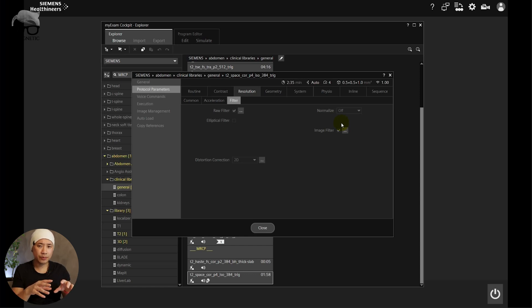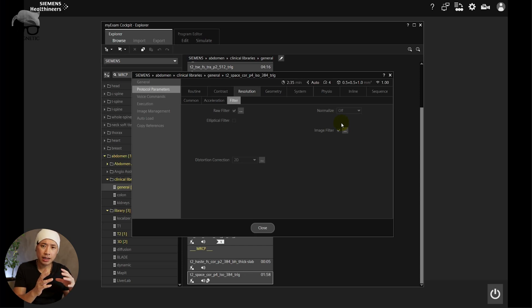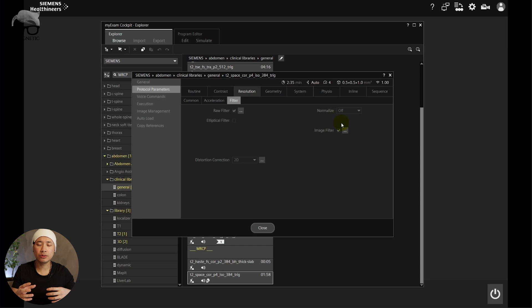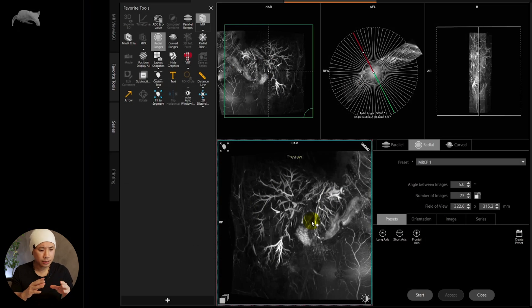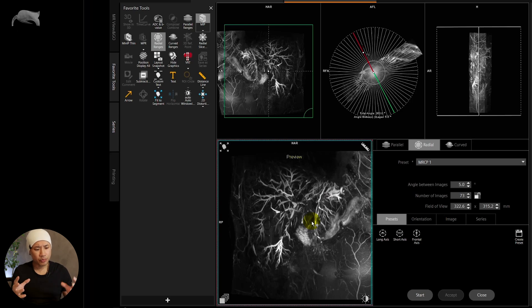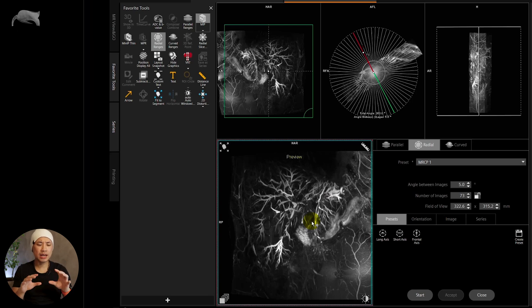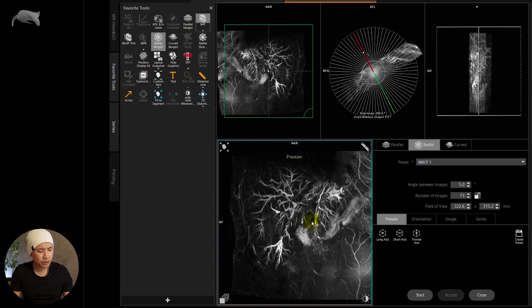I made some mistakes using the sequence directly from the library because at the beginning I didn't understand why the image quality turned out the way it did. But I'm also going to show you how to retrospectively turn pre-scan normalize on and get good images without needing to rescan the patient, in case you forget to turn it on. The first thing I noticed was on this MIP image — pre-scan is off — you can see there are high spots and low spots in the brightness. It's very bright in one area but dark in another, so it's not homogeneous. Pre-scan normalize makes the image more homogeneous.